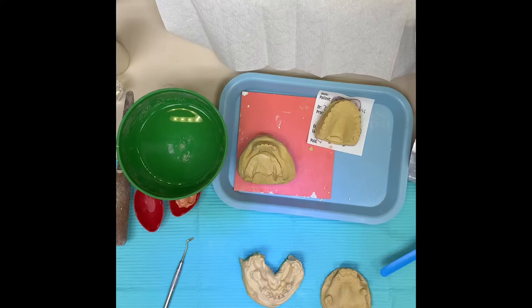Hey, this is Dr. Dyer - Texas-size smile. I want to do a quick video on something that we did in dental school years ago and it's still applicable today. If you've tried doing digital impressions and found that it's really difficult, I'm going to do a quick demonstration on how to make a custom impression tray.